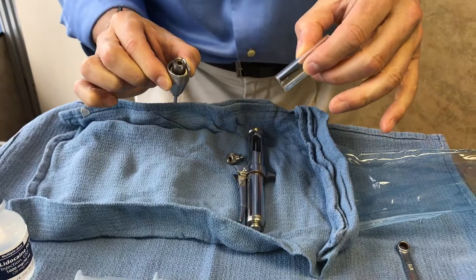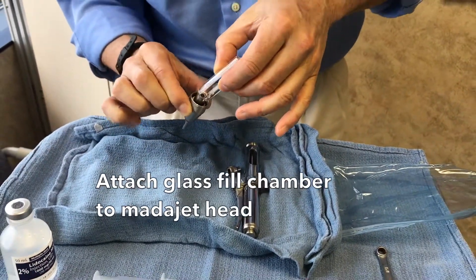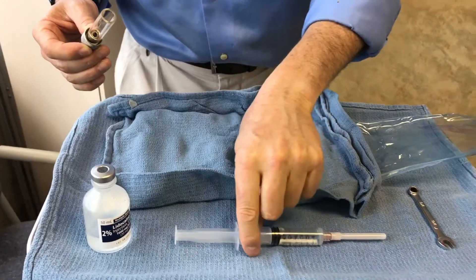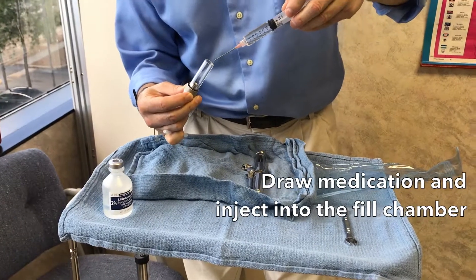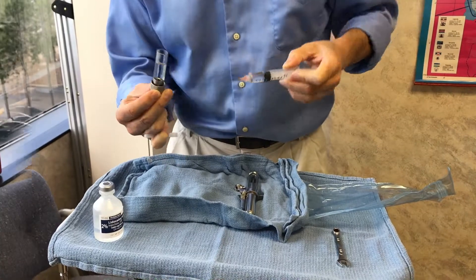This fill chamber I've contaminated on the outside, but the inside is still sterile. I mount the fill chamber into the head. This is 2% lidocaine — we've drawn some up in a 10cc syringe with an 18-gauge needle. I'm filling the fill chamber with 2% lidocaine.